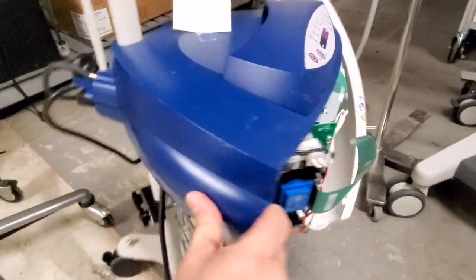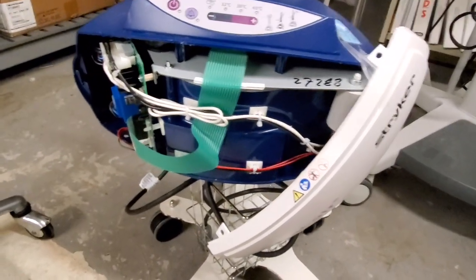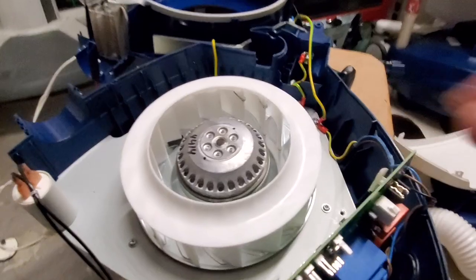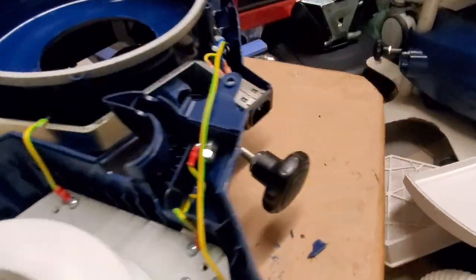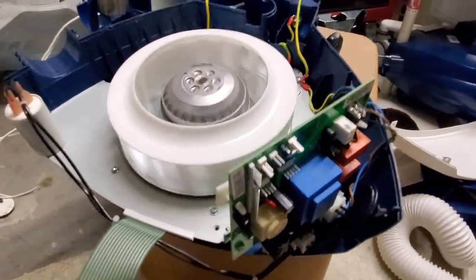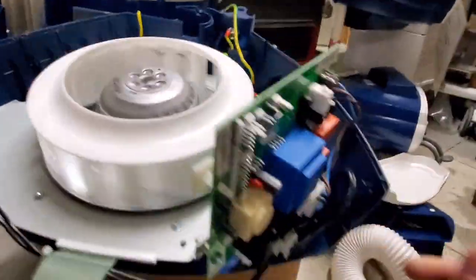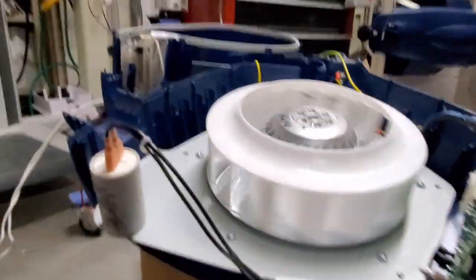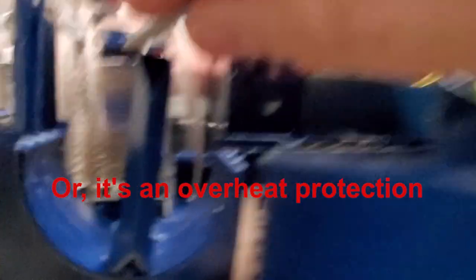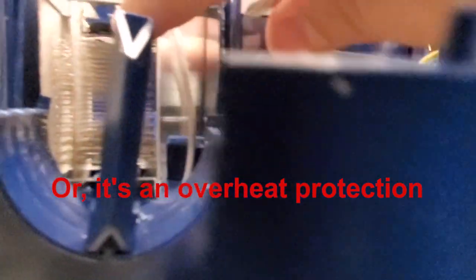This unit — the one I've been using as my camera prop — you can see what happens: the front of it explodes because somebody lowered a bed on it, very typical. So guys, that is basically it for the inside of one of these forced air patient heaters. They're not very maintenance heavy, but almost all the maintenance for these devices is done by the OEM because of the blanket contracts that we have.